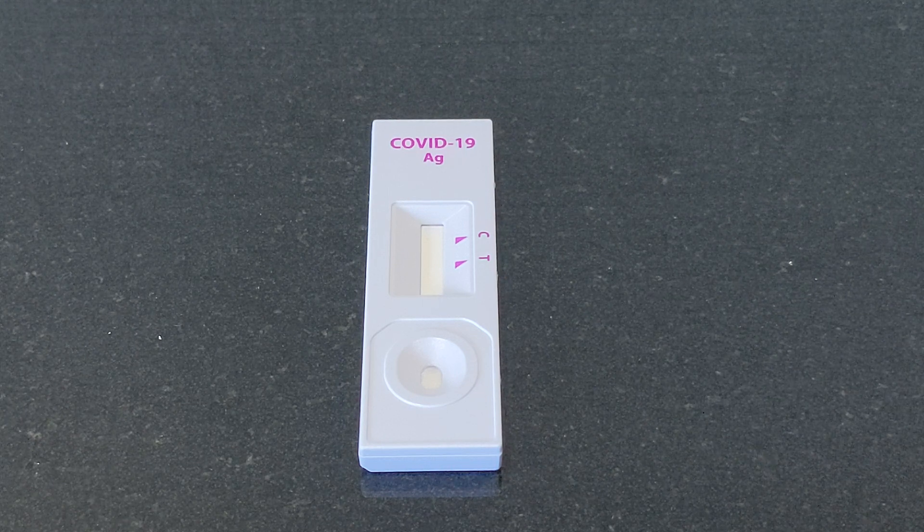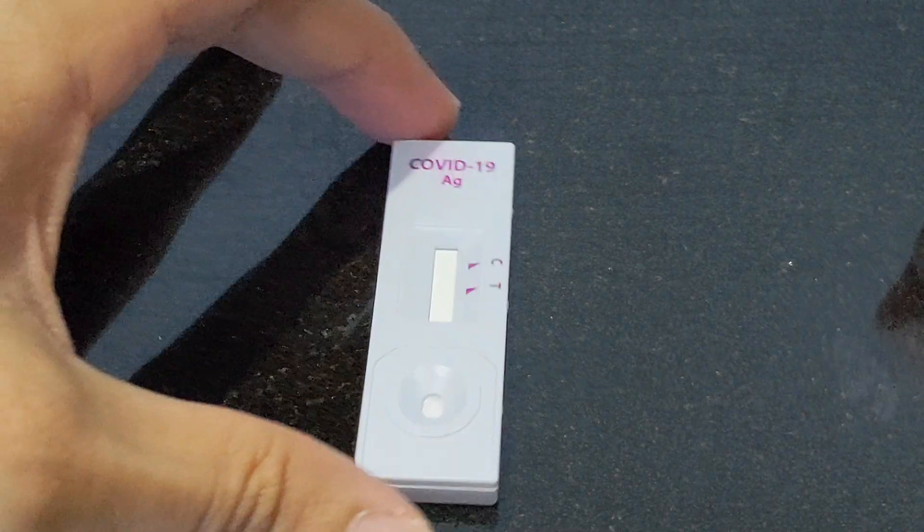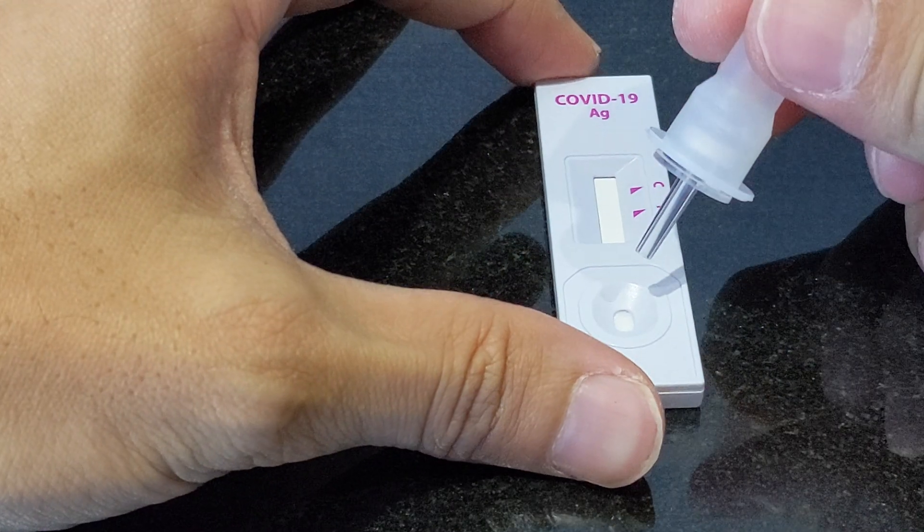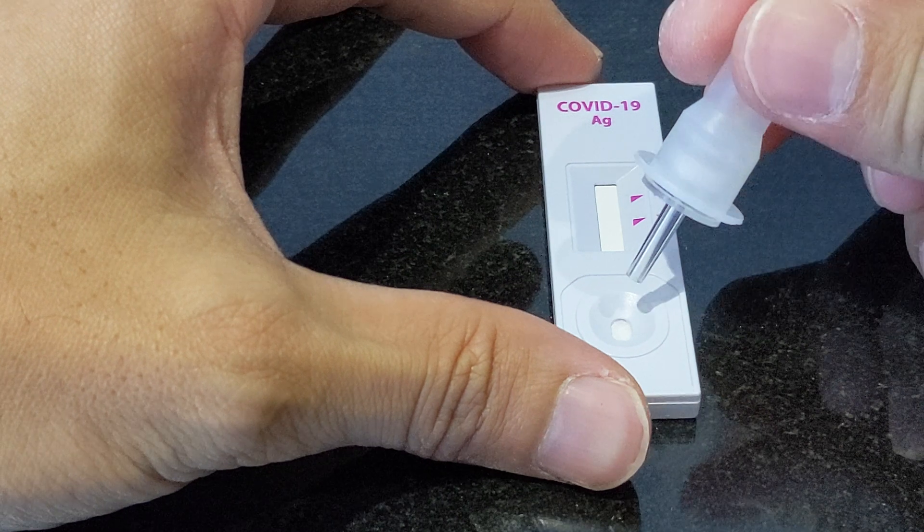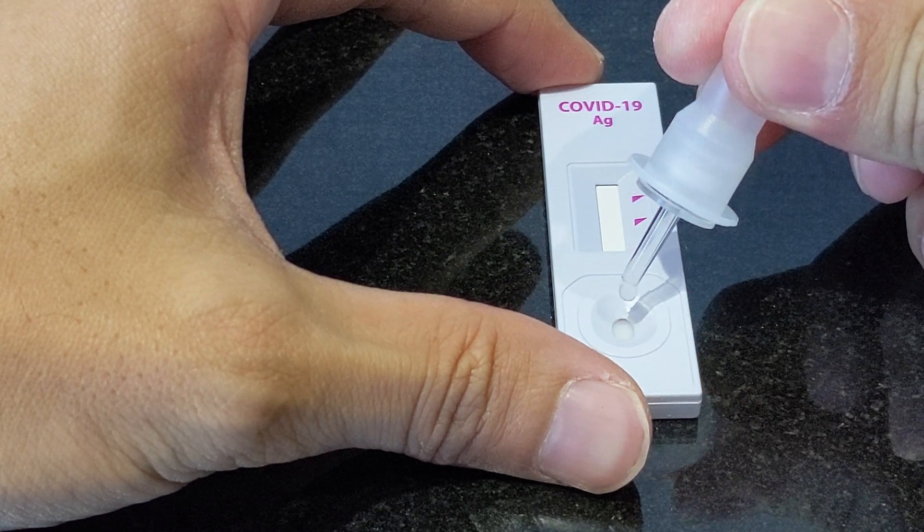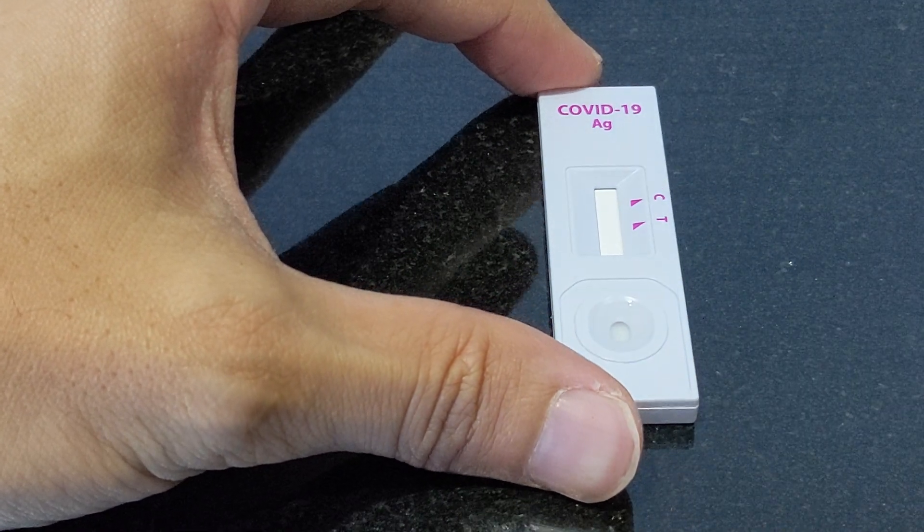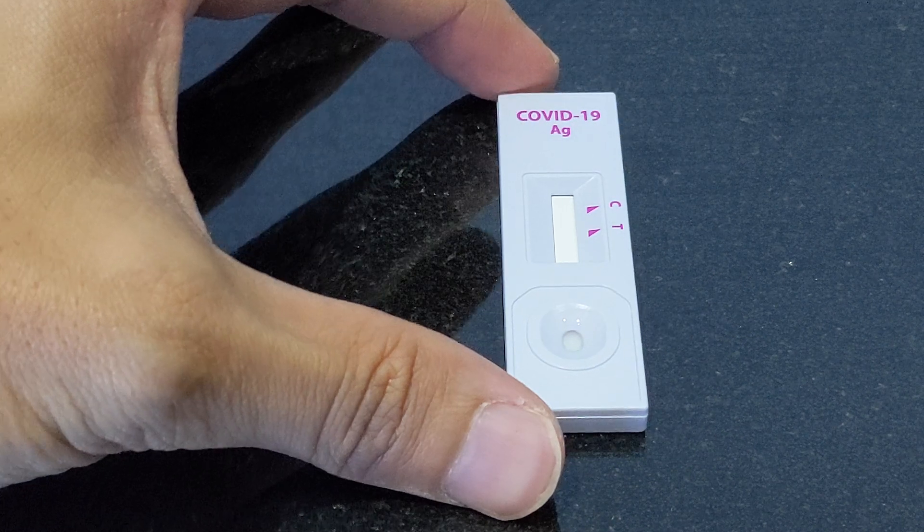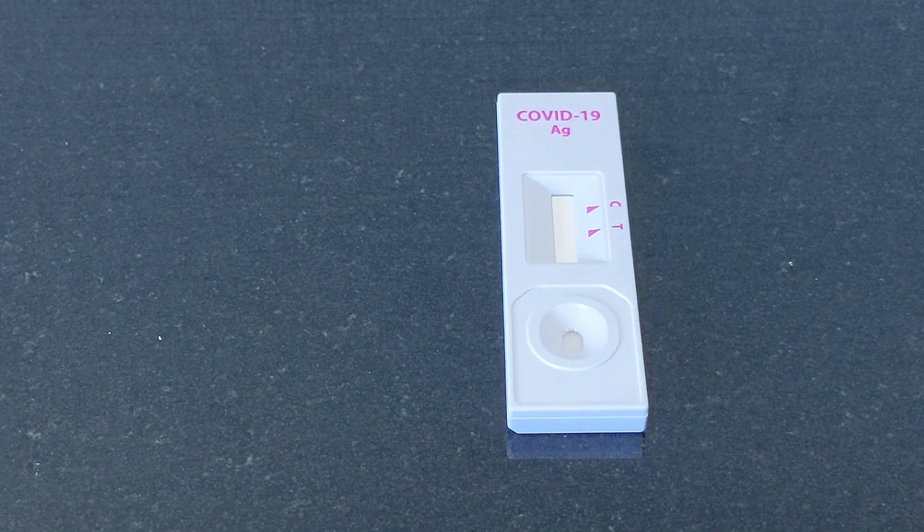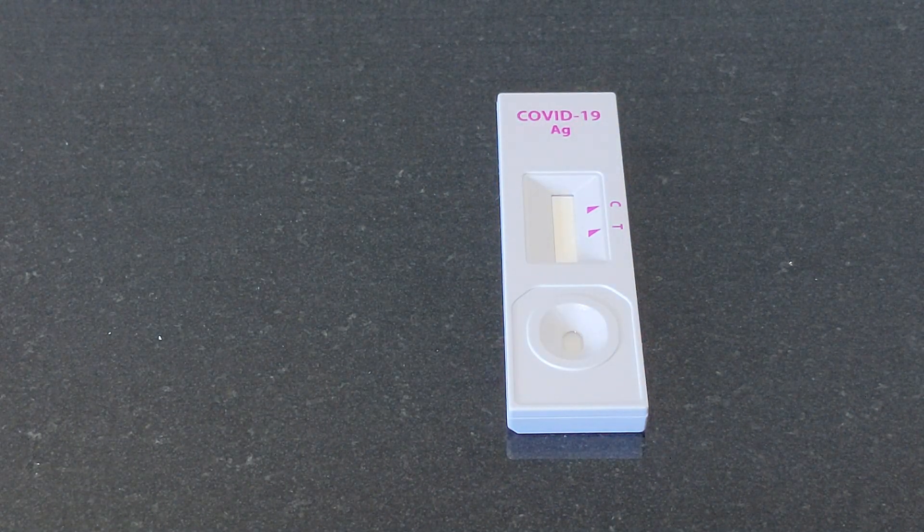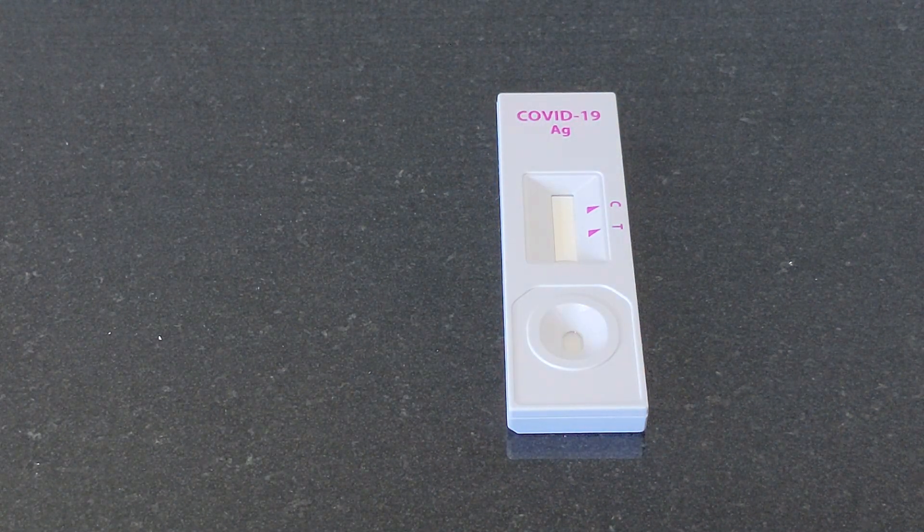In this video, I'm going to share a view of how the test kit shows you if you are positive, because I was quite curious how it works as I'm infected with COVID as well.